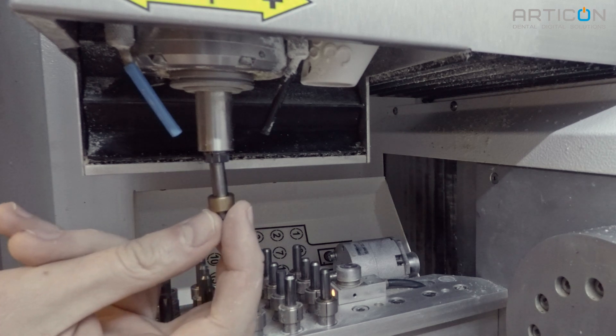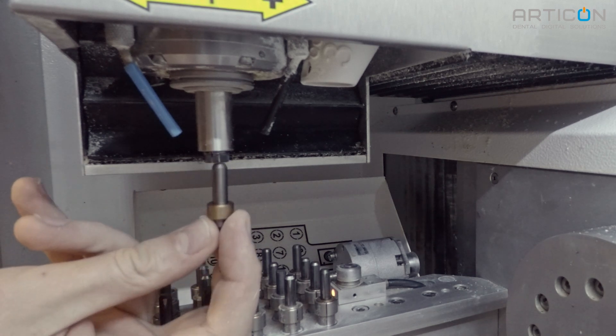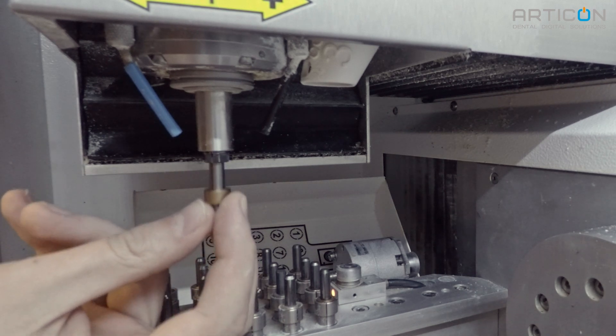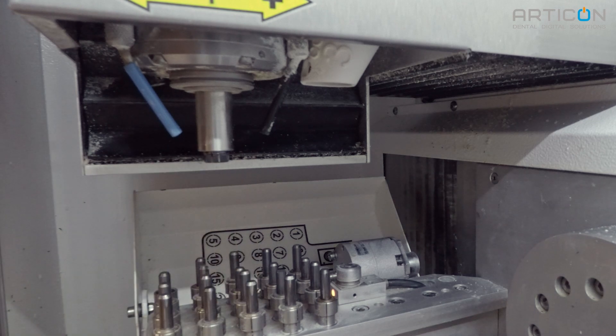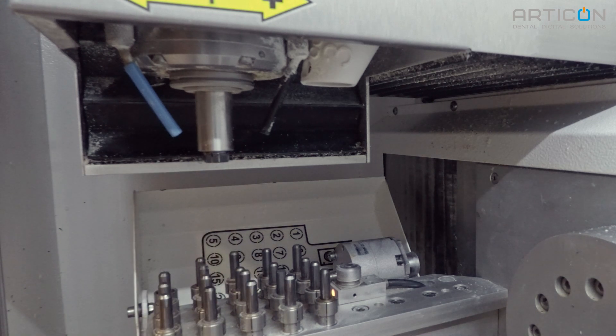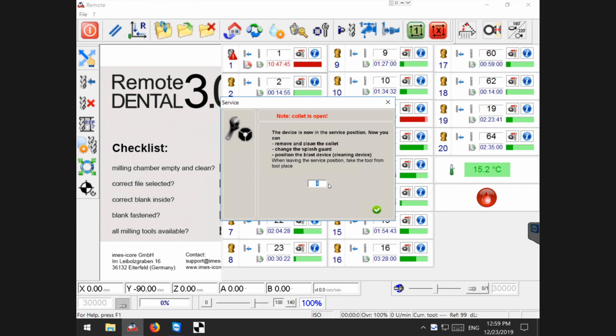Take a spare tool and insert the tool shaft into the collet. It should slide in easy. If it's good, then cleaning is finished and we are getting back to the dialog window on the screen.